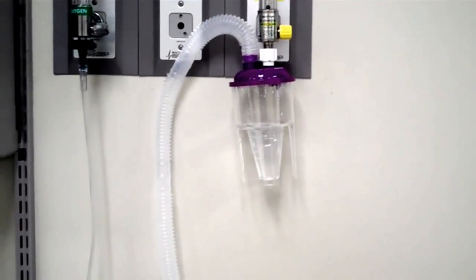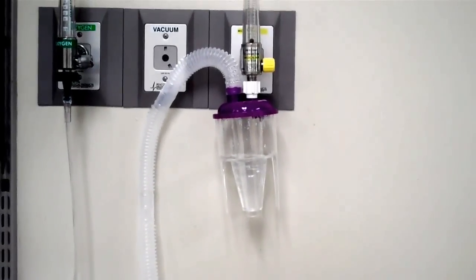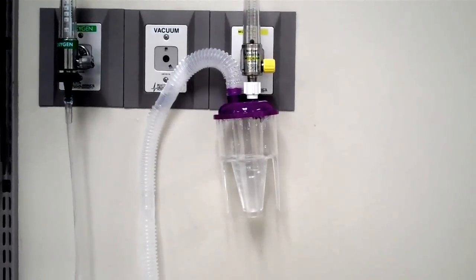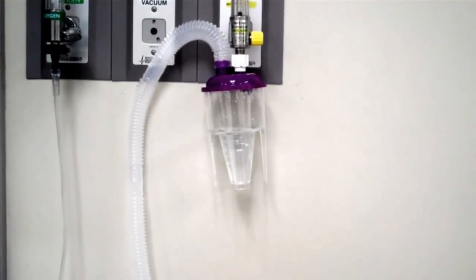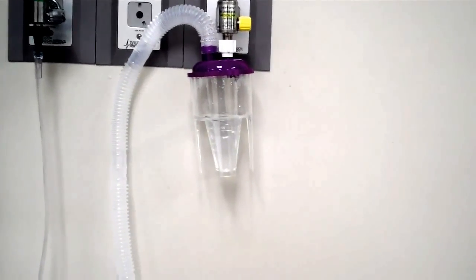Hi, this is Alan and what you're looking at right now is a large heart nebulizer. This is used for continuous medication aerosol therapy. This is when you're going to be giving more than one treatment at a time.